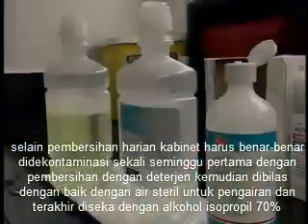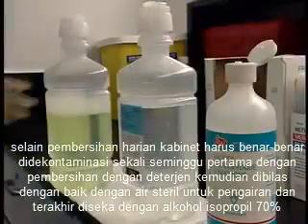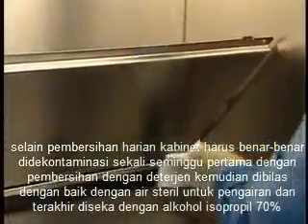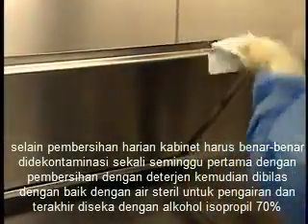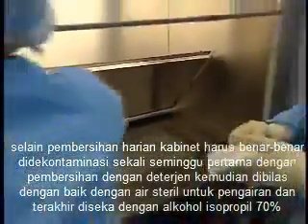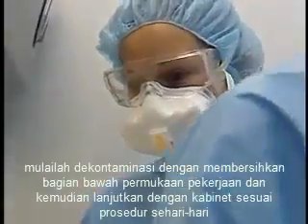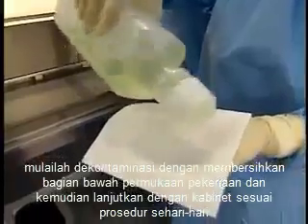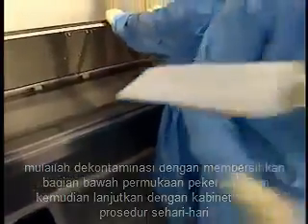In addition to the daily cleanings, the cabinet must be thoroughly decontaminated once weekly, first cleaning with a detergent, then rinsing well with sterile water for irrigation, and lastly, wiping with 70% isopropyl alcohol. Begin the decontamination by cleaning the underside of the work surface, and then continue with the cabinet as per the daily procedures.